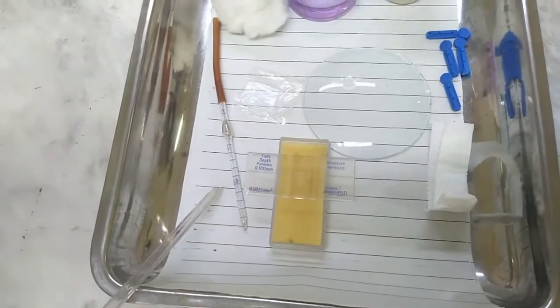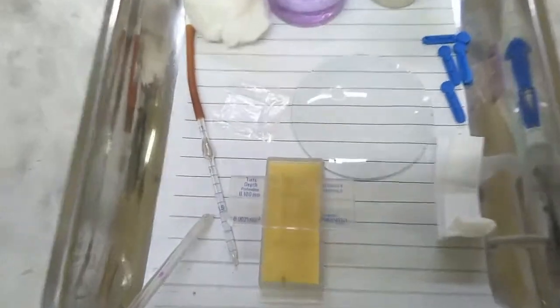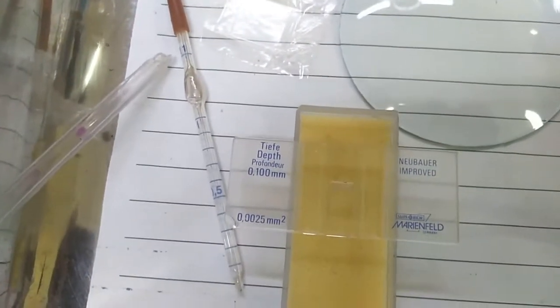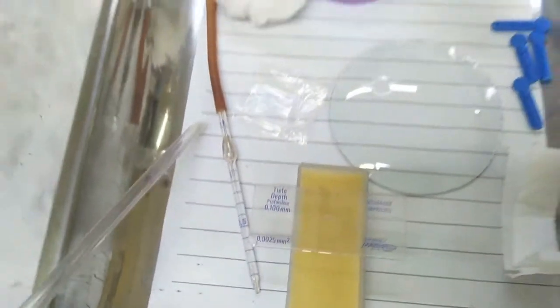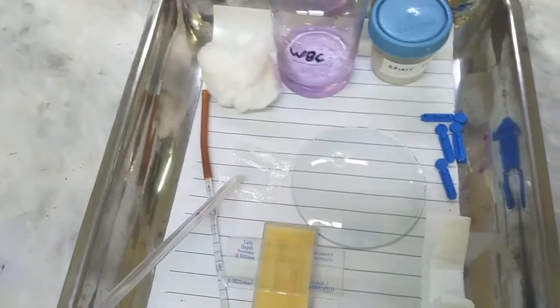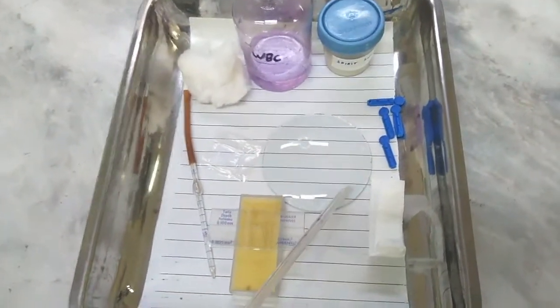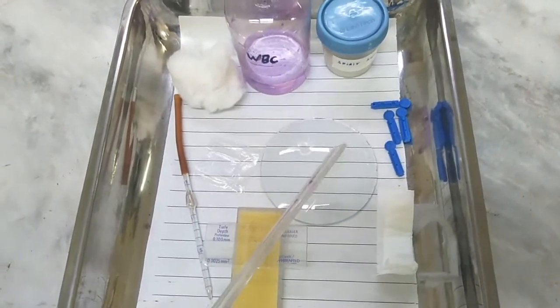The first mark on the WBC pipette is at 0.5 and the second mark is at 11. The next thing used is the cover slip. Here is the watch glass. The purpose of the watch glass is that the Turk's fluid is taken in the watch glass and then it is taken into the pipette.